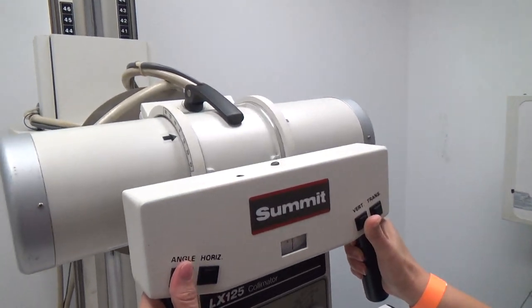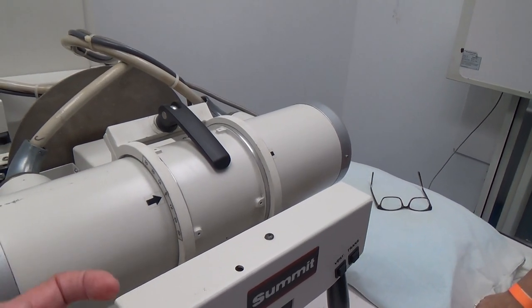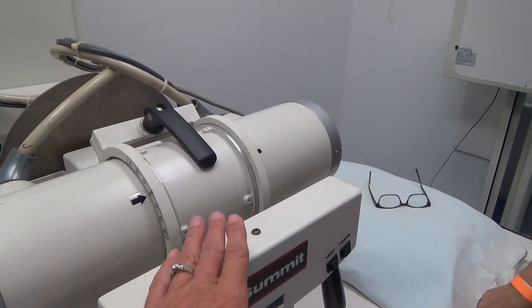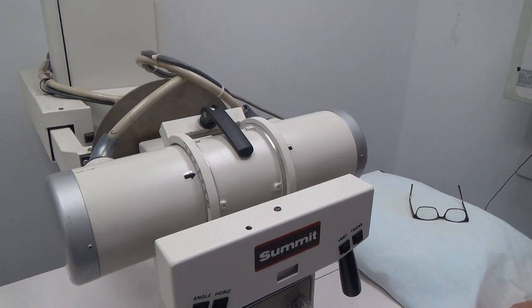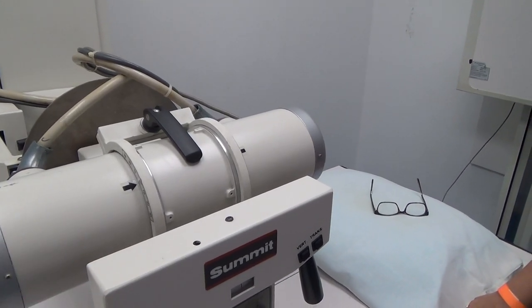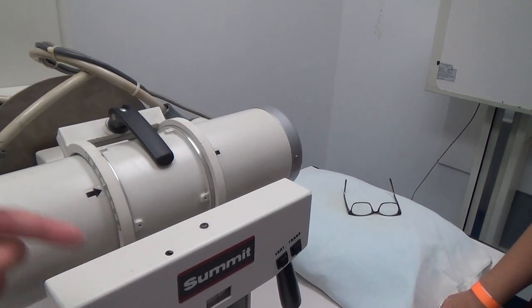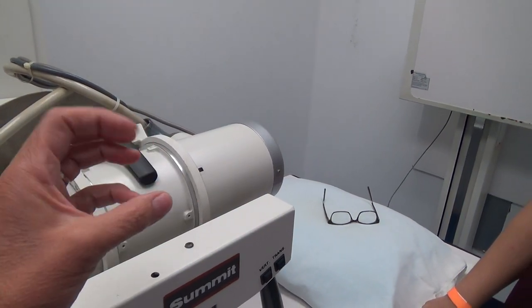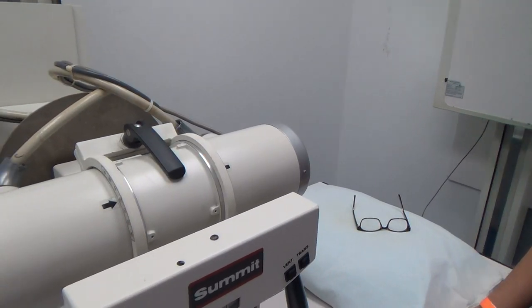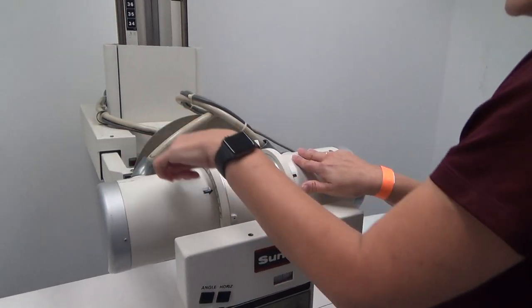Inside of that tube is what's called a glass envelope — it's like a Pyrex glass and it's sealed. Inside of this glass envelope are some very important components: one is called an anode, the other is called a cathode. The cathode has a filament in it that heats up to a degree that you set on the console, and that allows you to regulate how much radiation you're producing. The anode is a very important structure — it actually rotates. When the cathode produces those electrons, they'll be flung to the anode and then directed down to the body part.